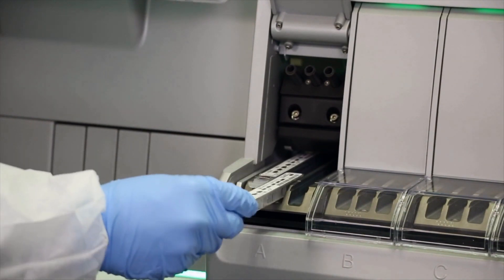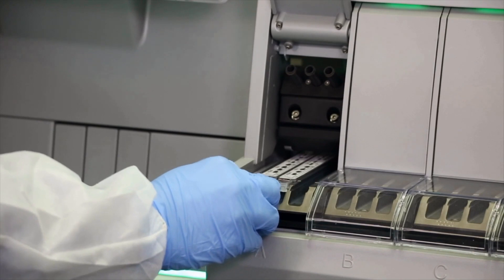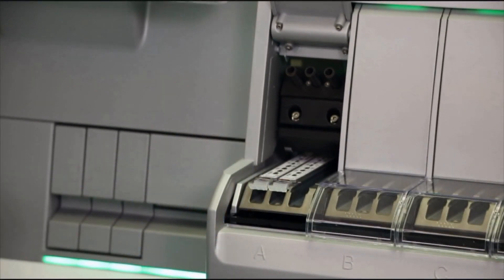Slide the strips into the strip tray according to the loading plan. The strips are slid into the tray until they click into their secured position.